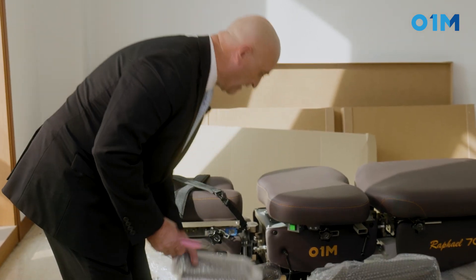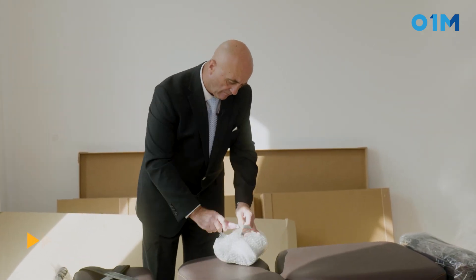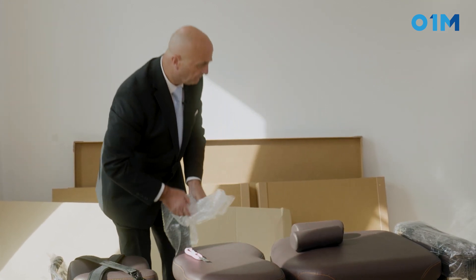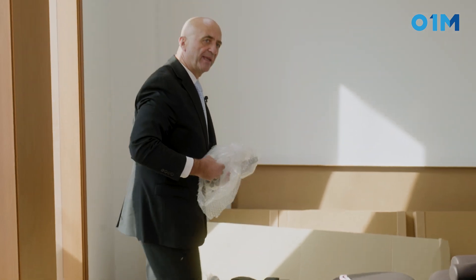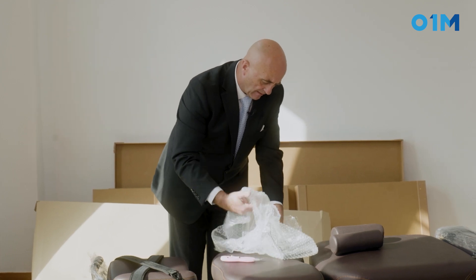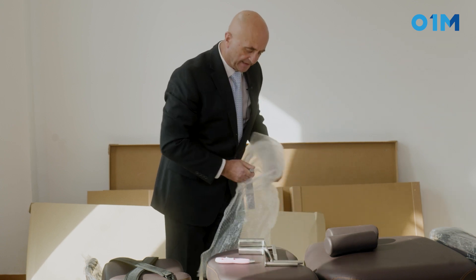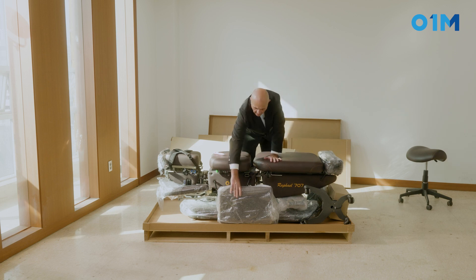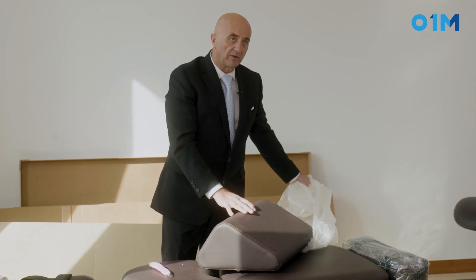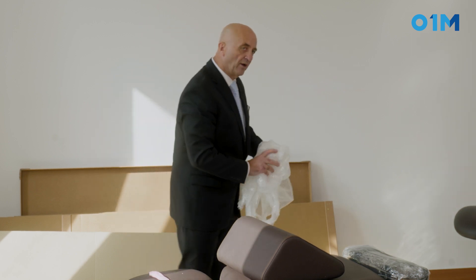Let's open together the goodies. Here we have the rolls — those will be the axillary rolls, and you should have two. We have those metal parts, which are quite heavy. We should have four metal pieces. We have the leg bolster, which will go under the patient's leg as they lie supine during a decompression session.